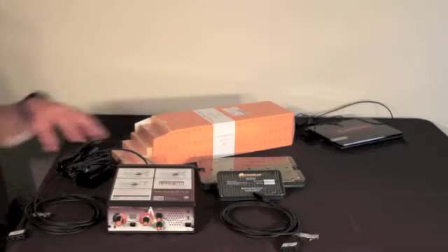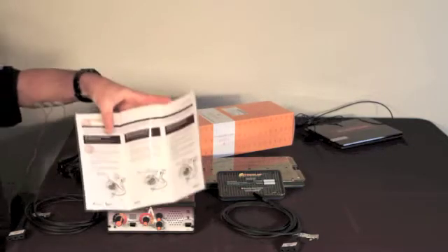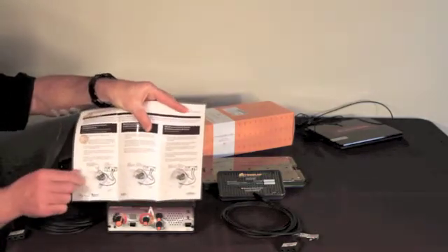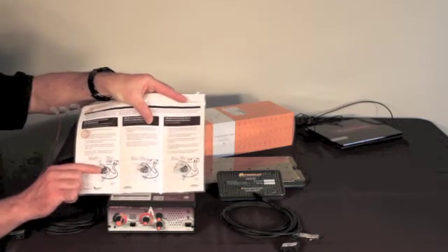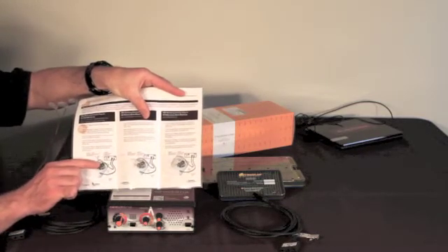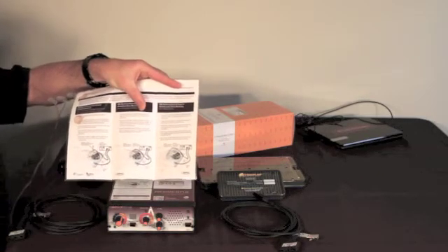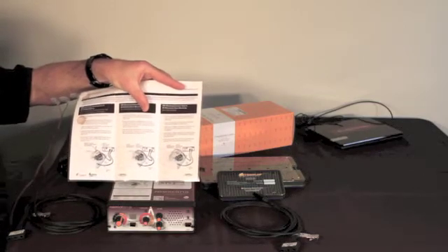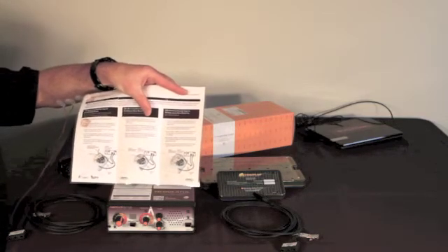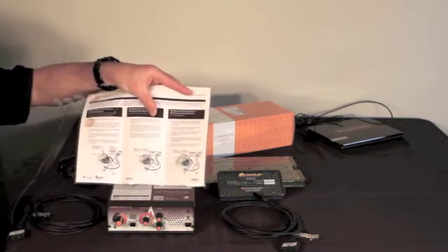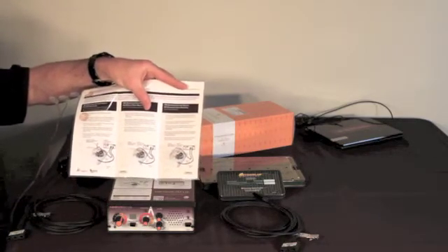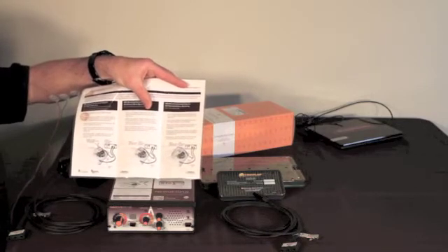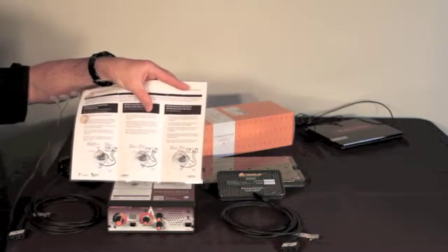Once you have the machine in place, now it's time to setup for the particular surgery that you're going to be doing. You're going to be doing one of three types of setup: either for thyroidectomy, parathyroidectomy and ACDF where the monitoring electrodes go on the endotracheal tube; in otologic surgery or parotidectomy you'll be monitoring the muscles of the face; and in neck dissection you'll be able to monitor lower branches of the facial nerve and the muscles in the trapezius area for the accessory nerve monitoring. So determine which setup you're going to be doing and locate the appropriate surgery kit.